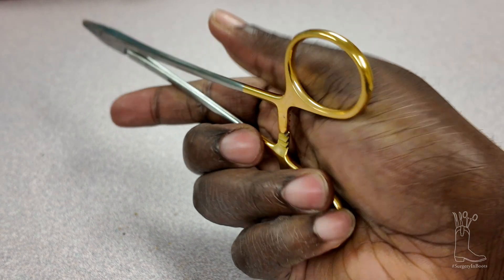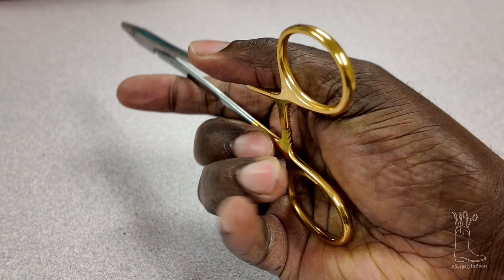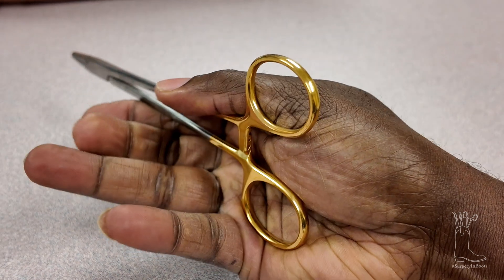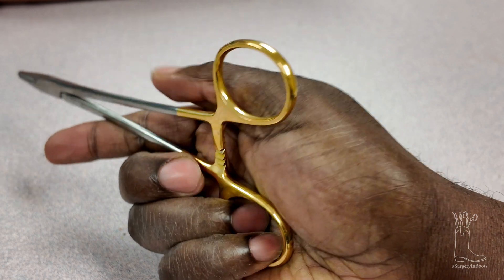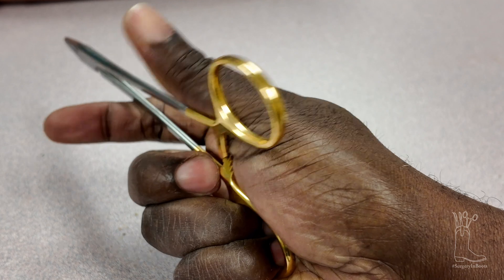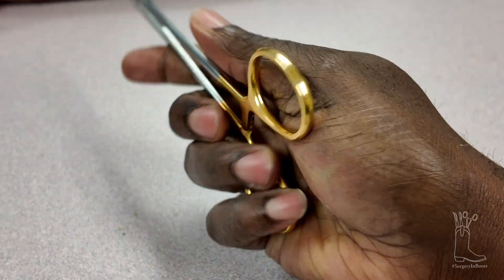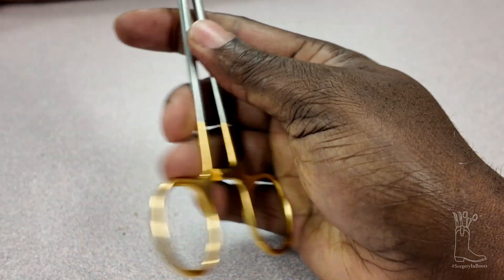Rotate it. If you want to push on finger four you can push right here, or you can push anywhere. There's also a style where you push down and out — so you push here, push down and close, push down and open it, because it's got those ridges. This is really the technique you should be practicing if you have an instrument before you get on your surgery rotation — being able to do this.